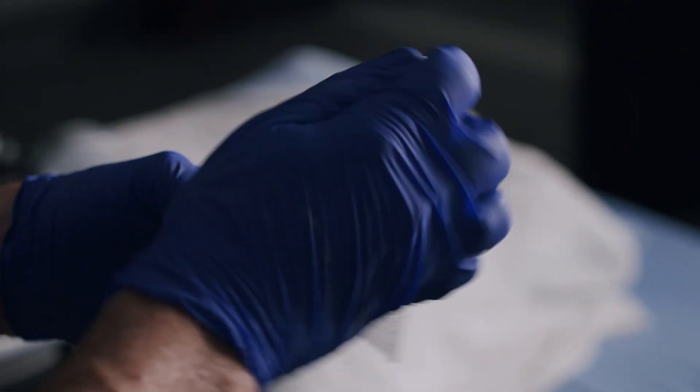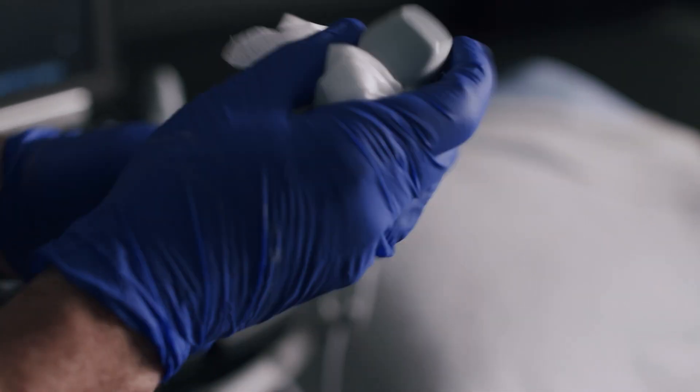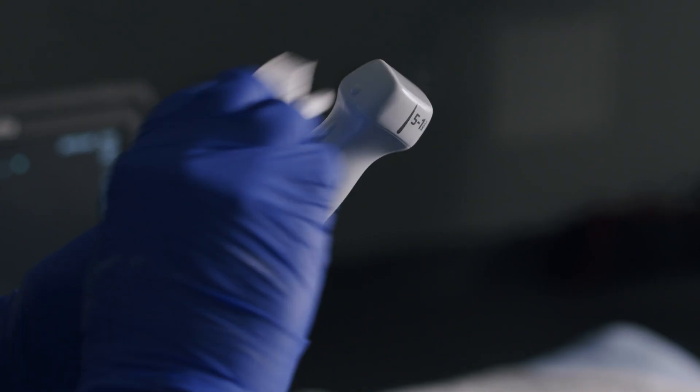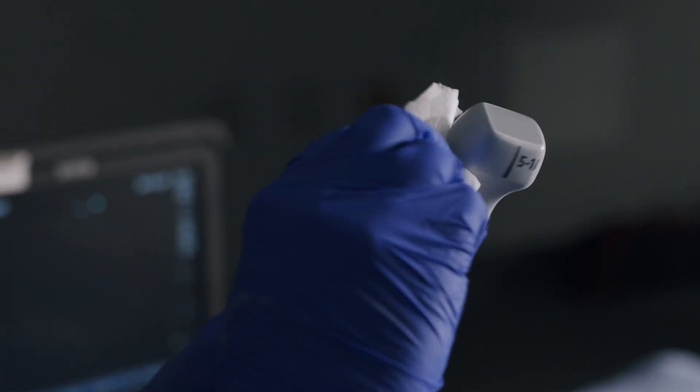Before we finish up, we need to change gloves and clean the probe and cable, and allow adequate drying time.